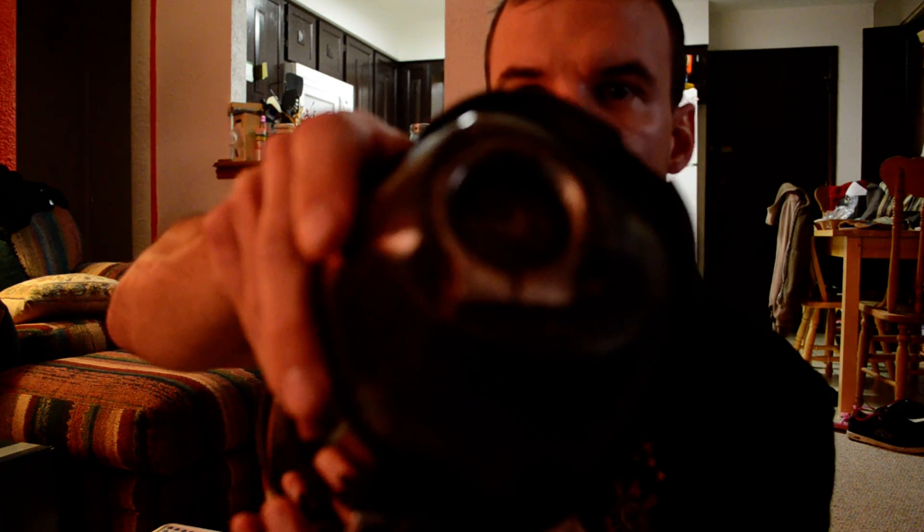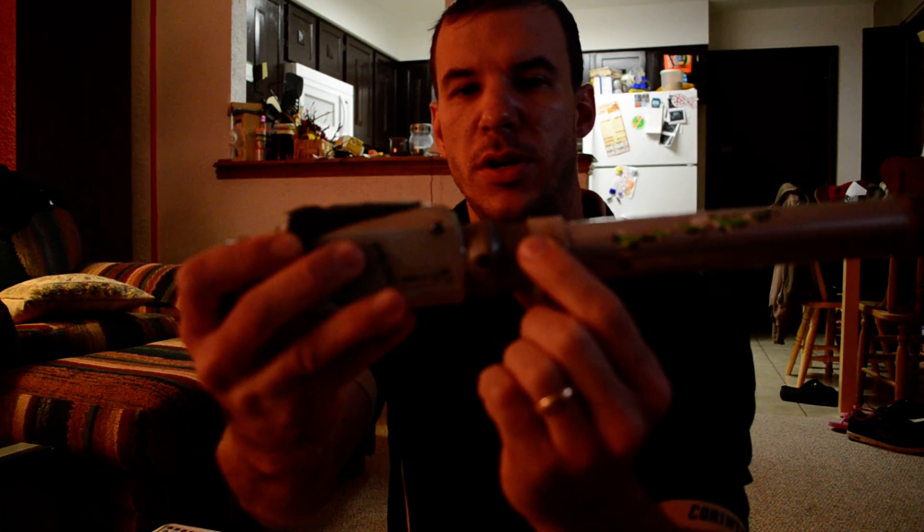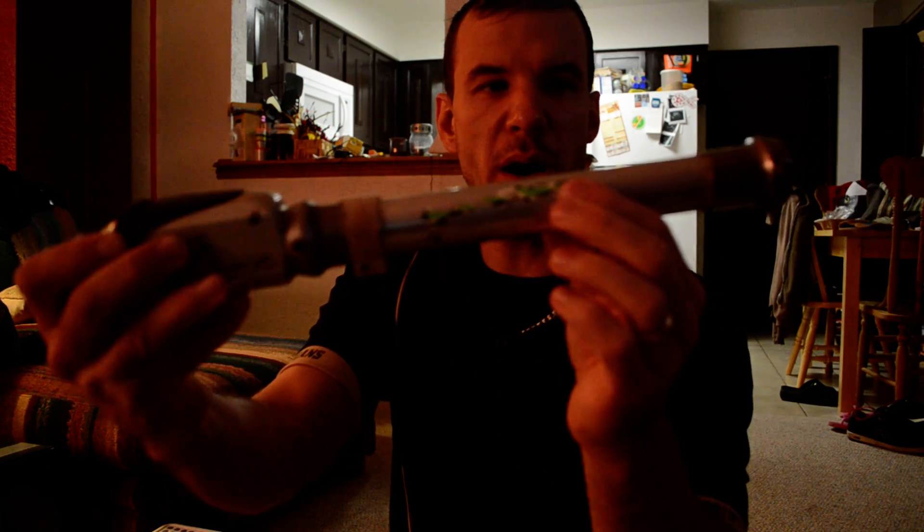First thing you have to do: the socket should have a kind of a female cup that's threaded and an Allen key bolt. My knee component only has a pyramid on the inside — that's the pyramid — and it's equipped with a type of adapter that goes on top so that it can go into that cup. The bottom of this knee also has a pyramid, and another adapter that attaches it to the pylon. The bottom portion of the pylon is welded with another pyramid adapter, and the top of the foot has a pyramid adapter on that end.